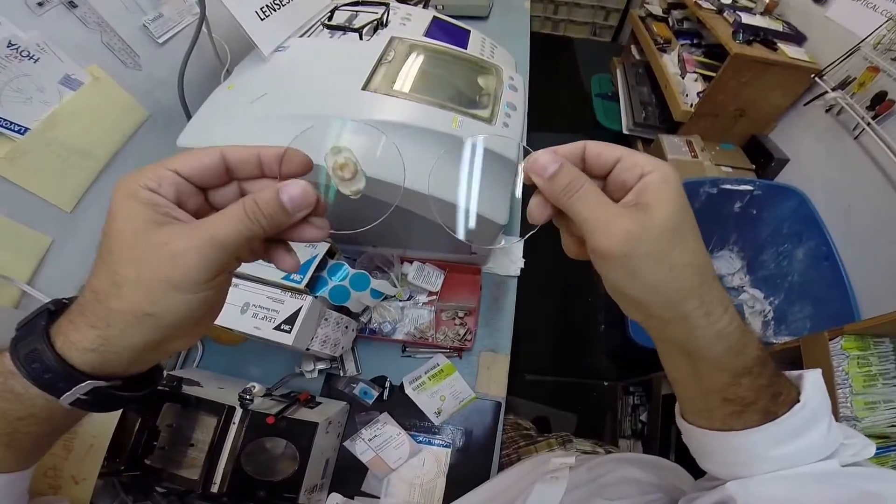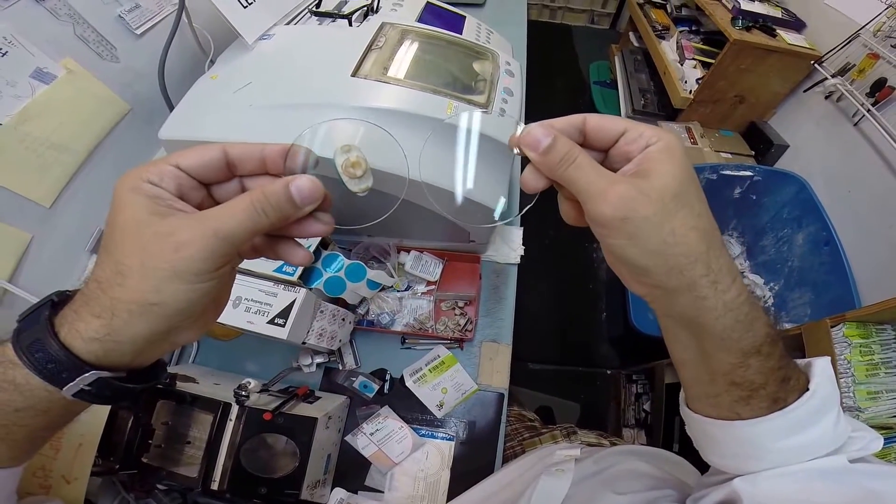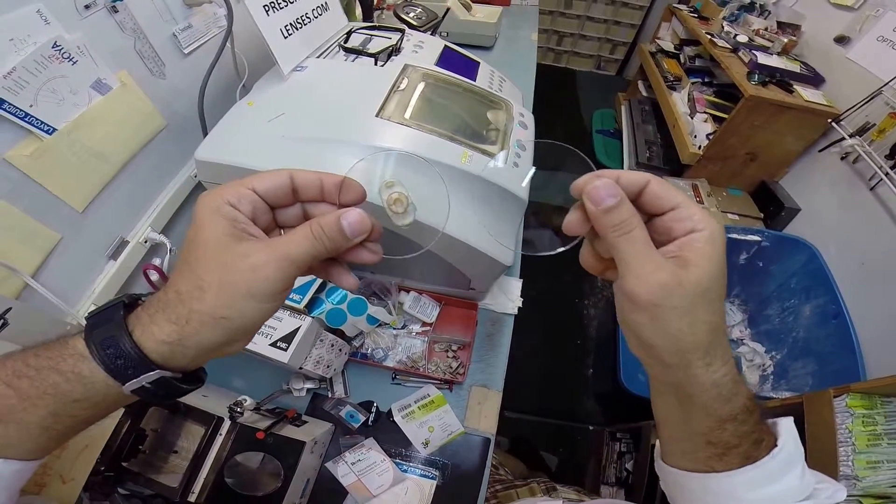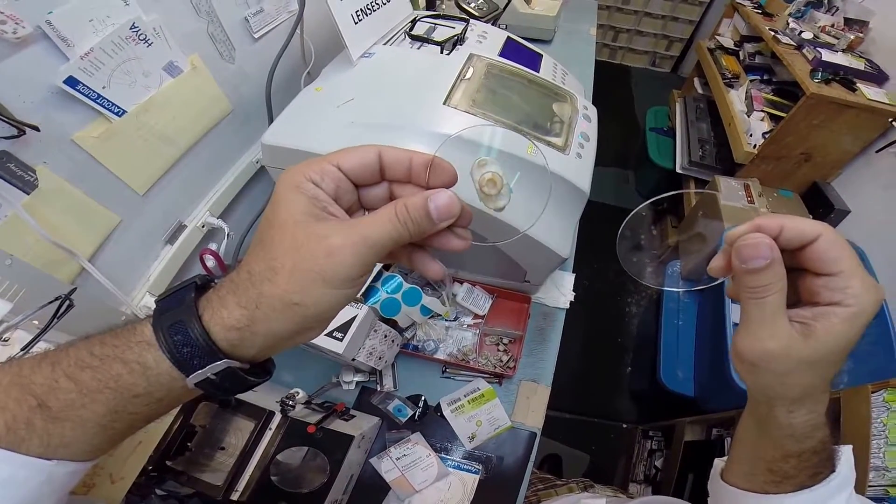This lens I just took out does not have that coating, so you can see how the fluorescent lights above me reflect off the lens.